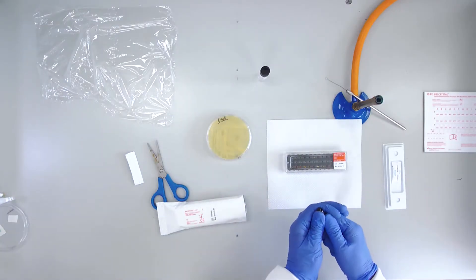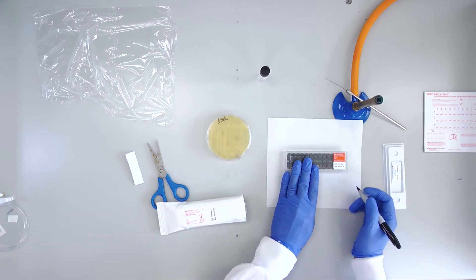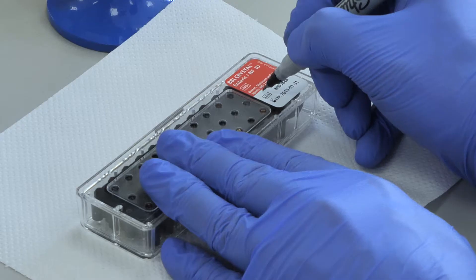Label the lid of the BBL crystal kit with your initials and the date.